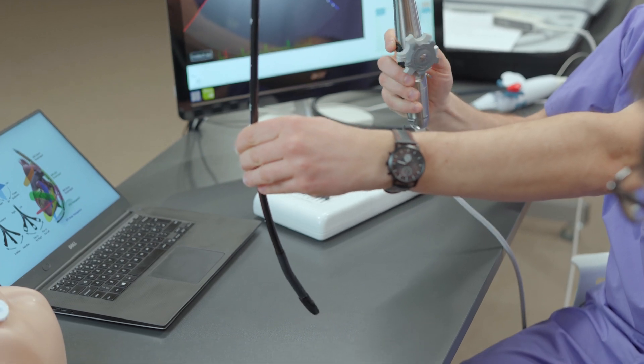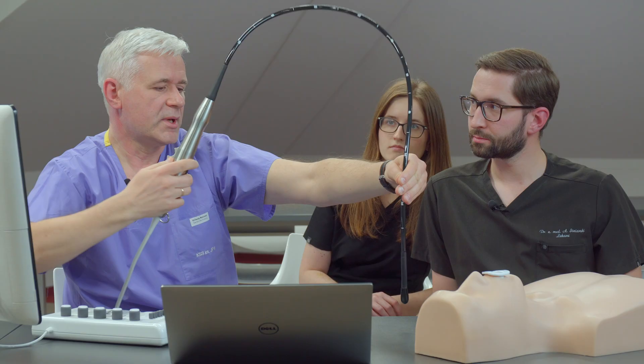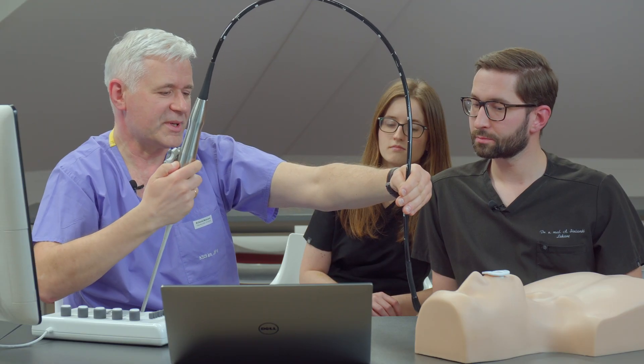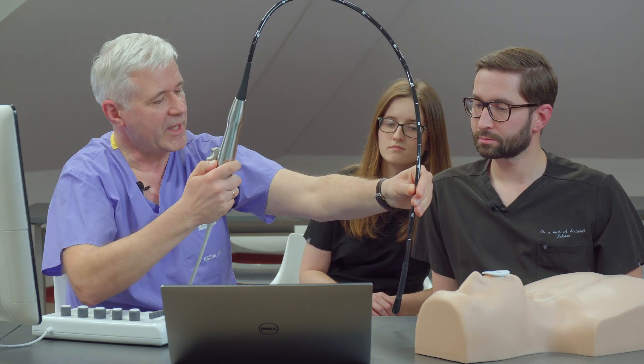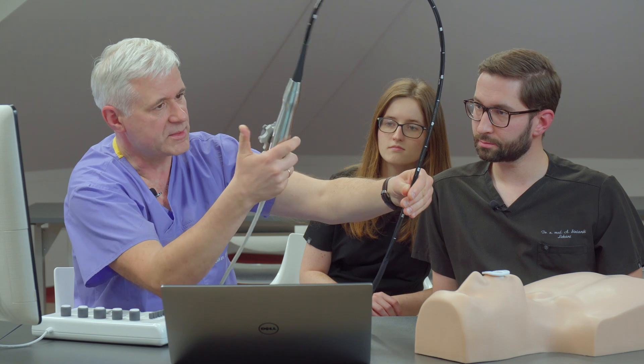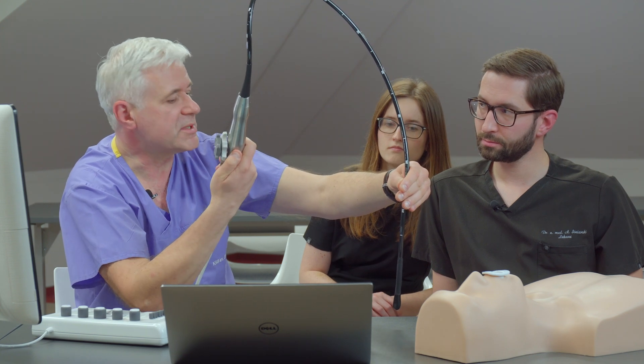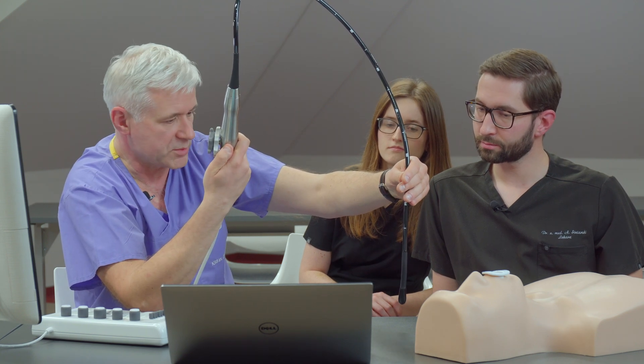This is a very rigid shaft. It will not let you rotate the probe itself if you keep it. It's really very rigid. Every motion of this device is transmitted to the tip of the probe. That's very important.